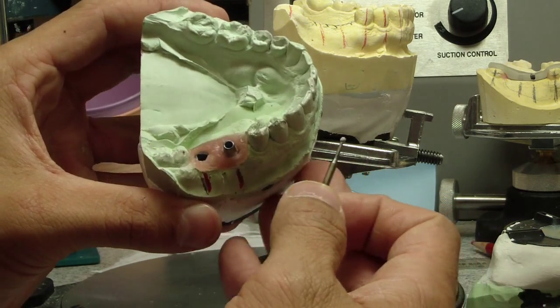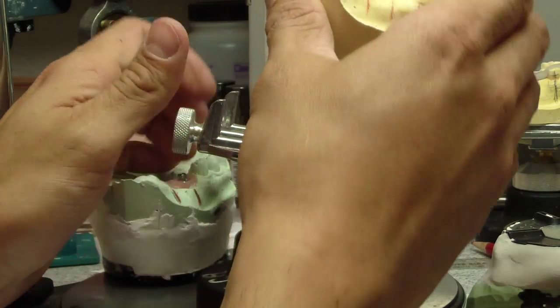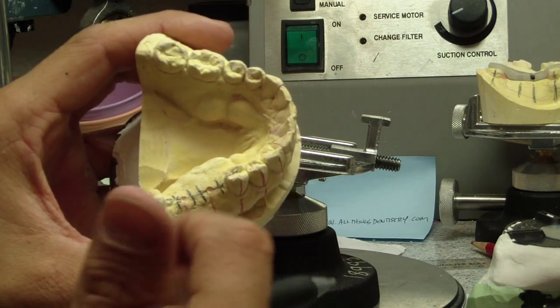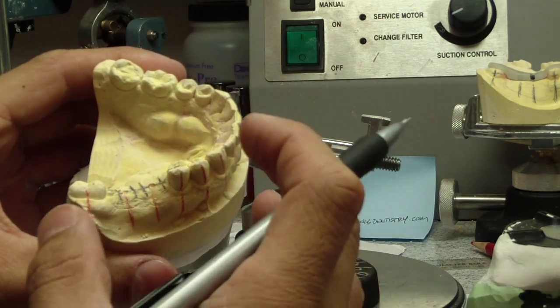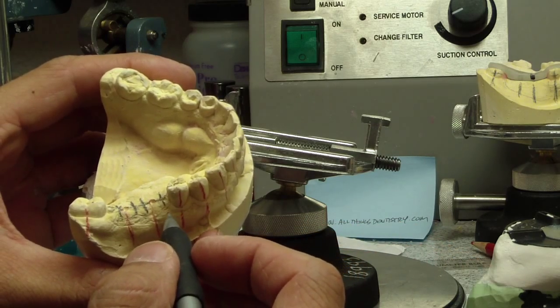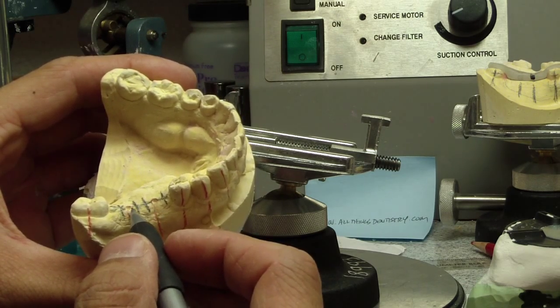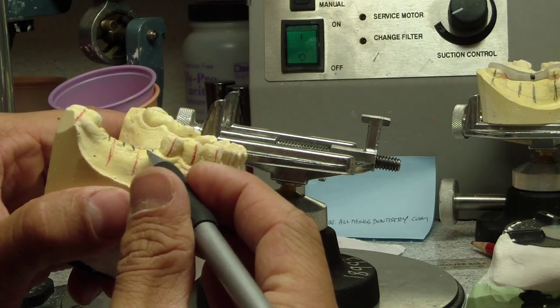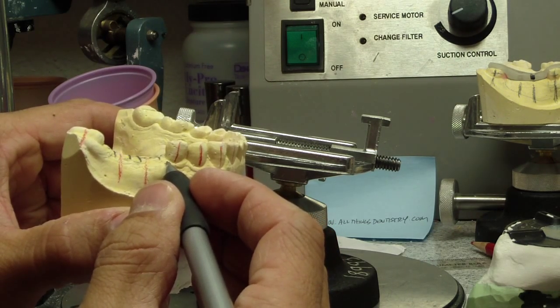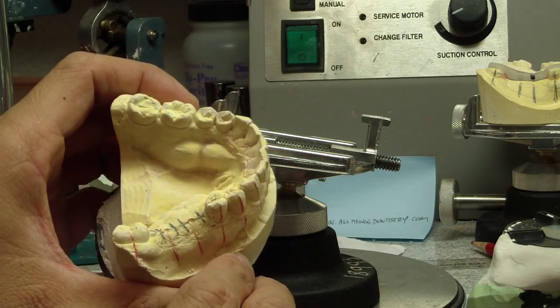We're splitting hairs here, but it's food for thought. When we start off, you can start with your wax up — that's helpful — but you also need to take into consideration the anatomical structures, apart from your radiographic and clinical evaluation. Just using the diagnostic cast instead of a cone beam to make a stereolithographic stent, we want our implants approximately two millimeters away from adjacent teeth, approximately three millimeters between adjacent implants, and seated at the osseous crest approximately two to three millimeters apical of the adjacent CEJ. This survey technique is really easy with an individual tooth.